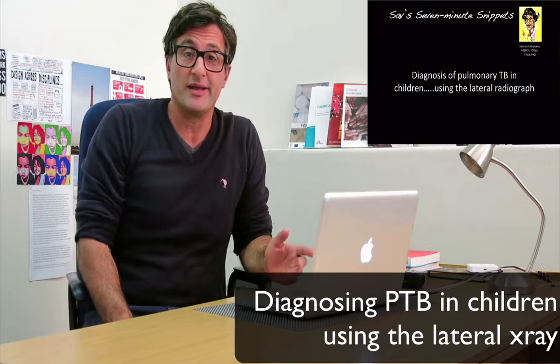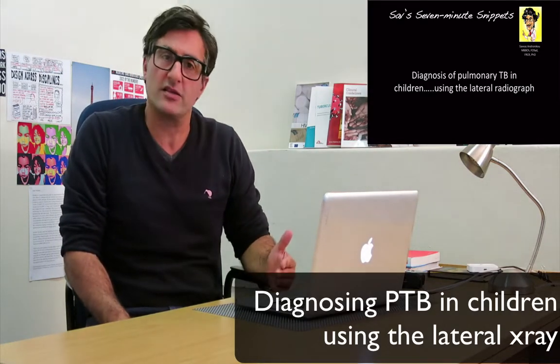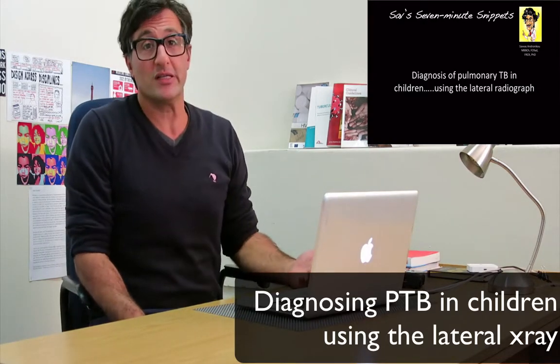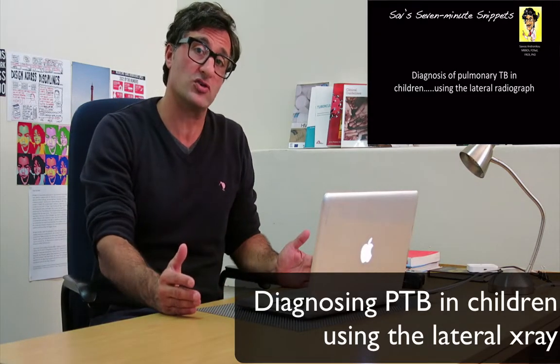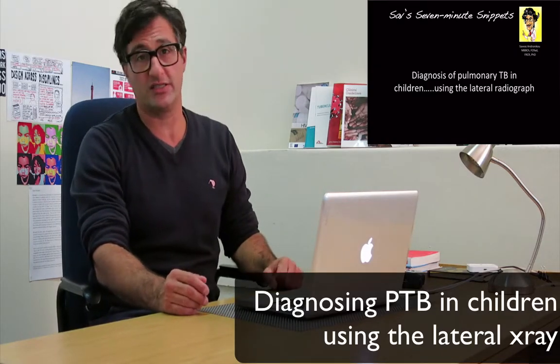This particular lecture is about diagnosing pulmonary TB in children, particularly using the lateral chest radiograph. I'm hoping that those of you working on the ground as clinicians will be able to use this to help you make a stronger diagnosis, maybe while waiting for cultures or other tests to come back, and I'm hoping to help you make a more definitive diagnosis this way.